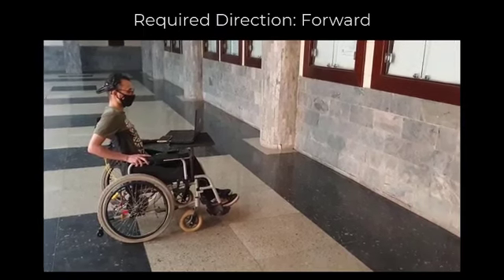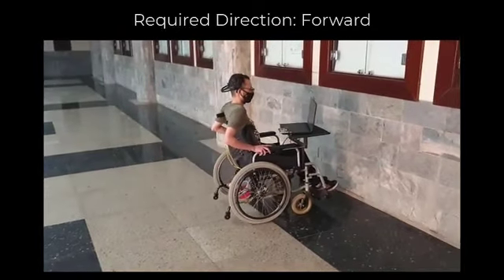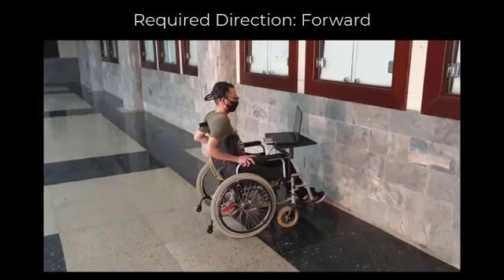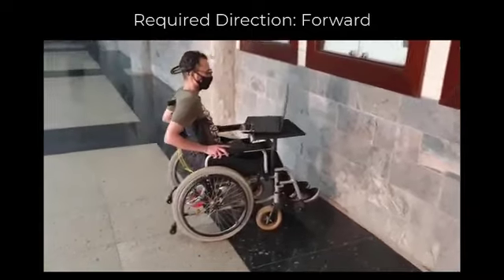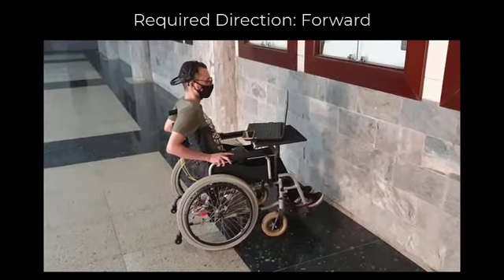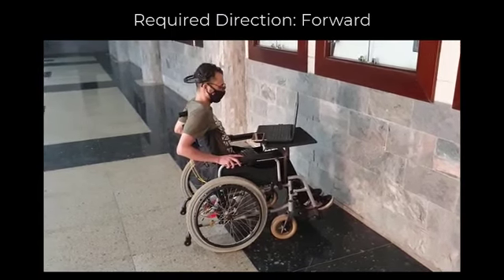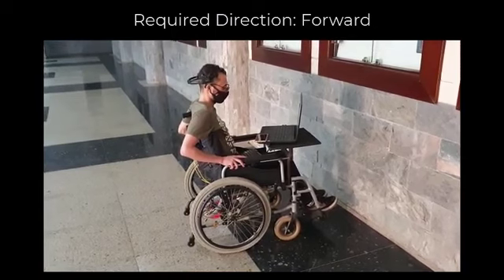The second forward command begins, but it's interrupted by the obstacle detection system due to detecting a wall in front of the wheelchair. The user still gives the forward commands, but the wheelchair never listens. The wheelchair does not execute any instruction that will cause the user to hit an obstacle.